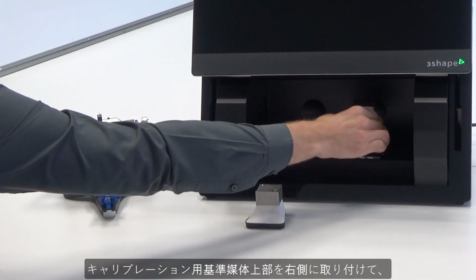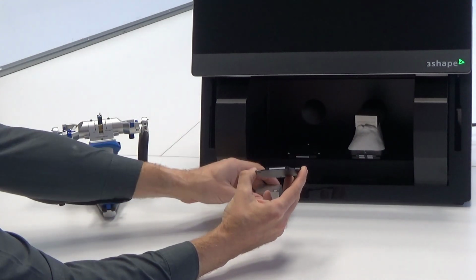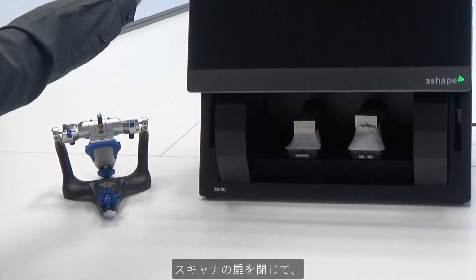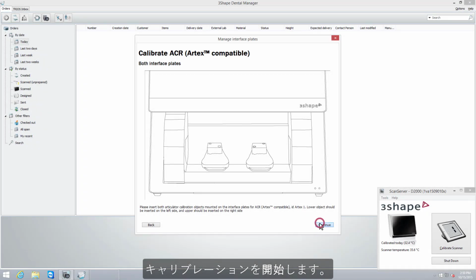Set upper part on the right side, and the lower part of the calibration object on the left side. Close the scanner and click Continue to start calibration.